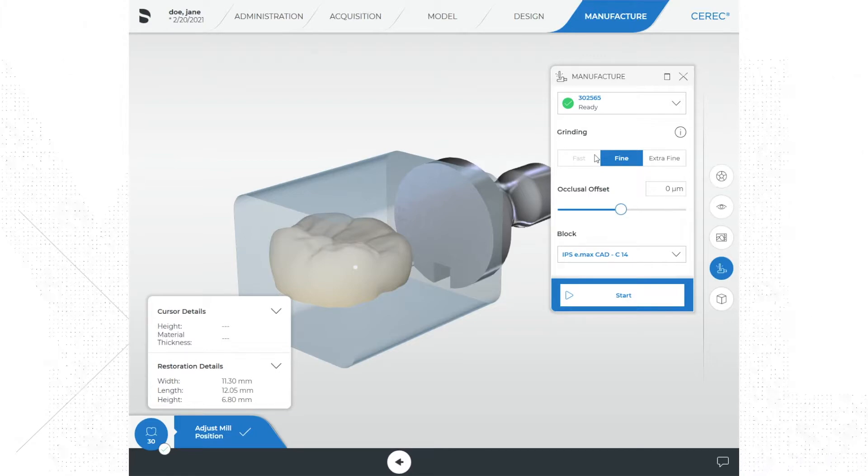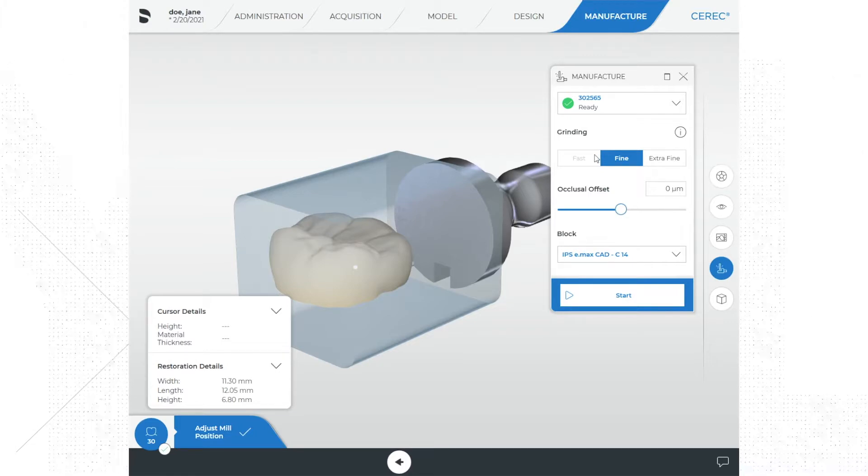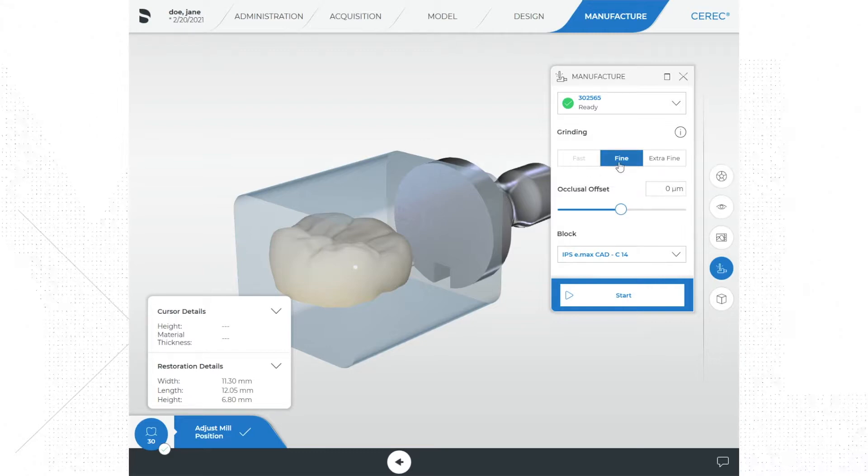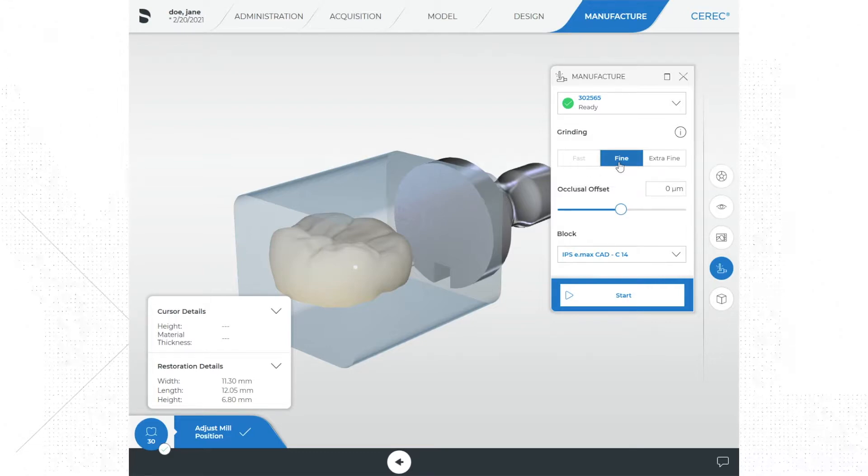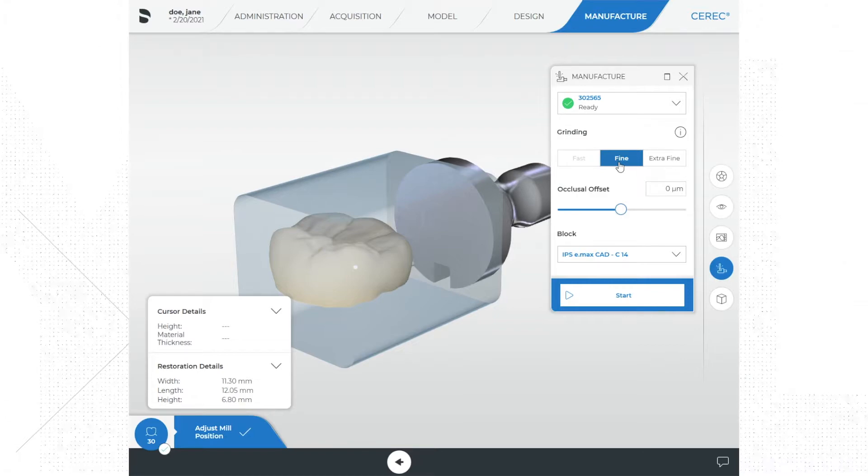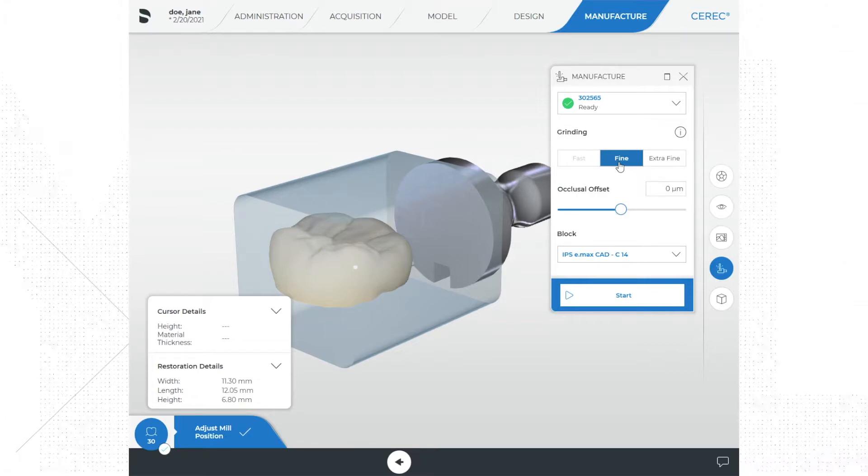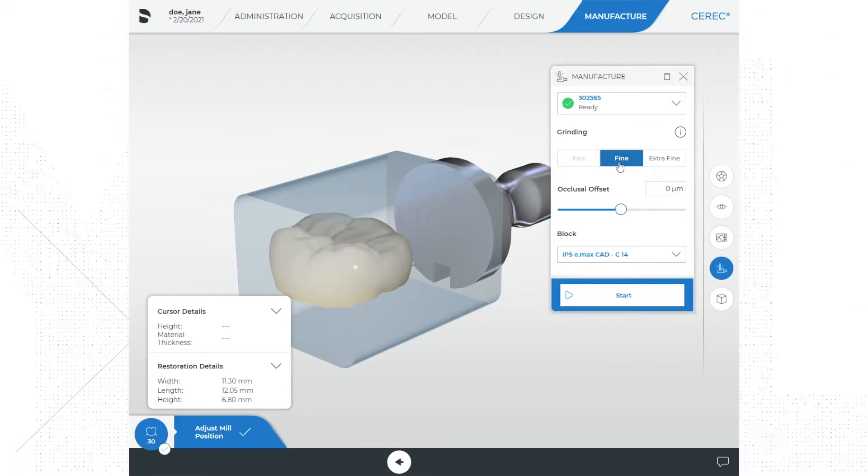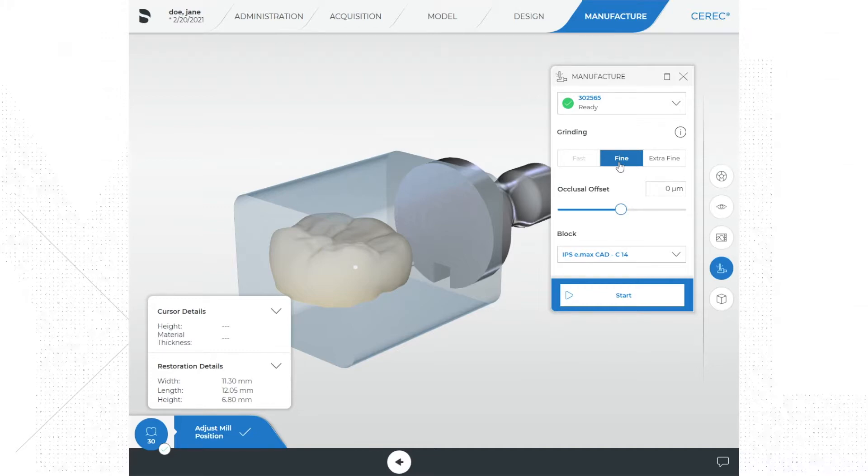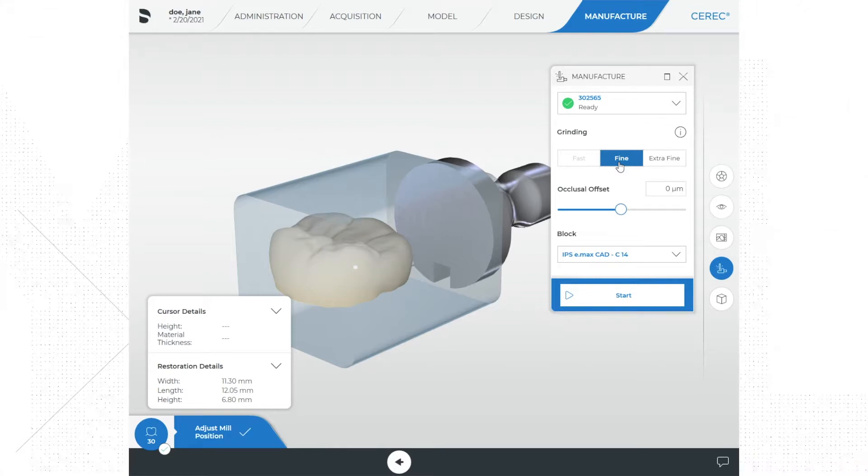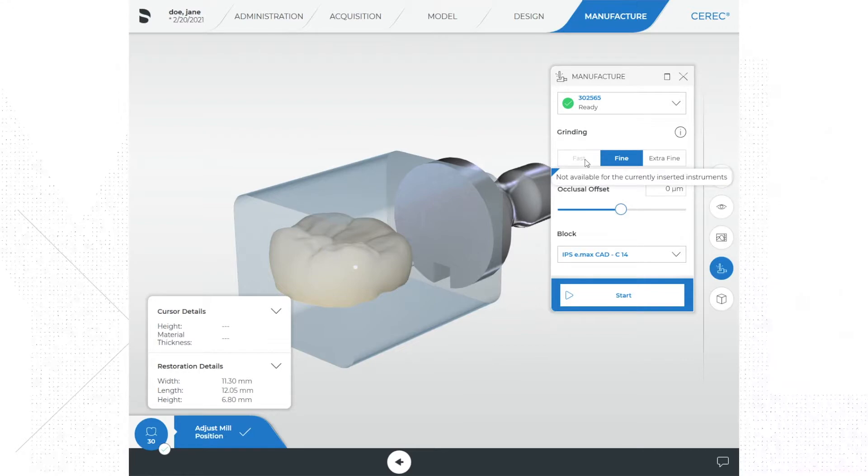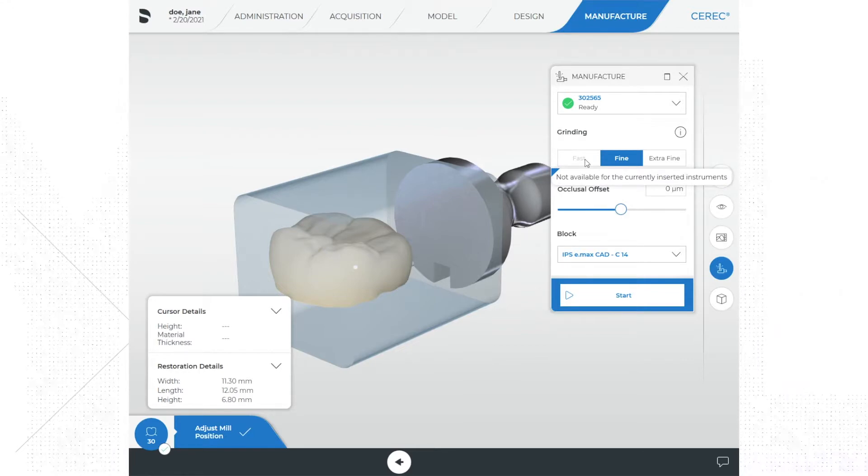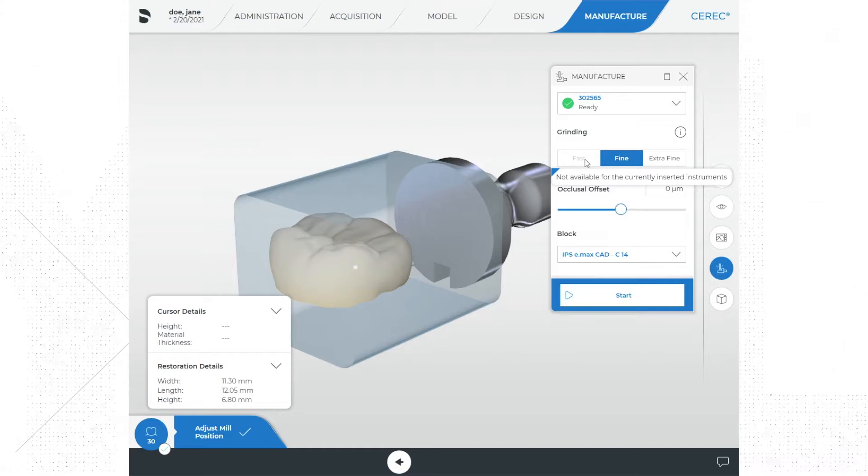Fine milling, which is the normal default option, is used for most restorations. This mode focuses on the surface quality of the restoration while reducing stress on the material itself. This is an option for when the restoration quality has priority over the milling time. Fast mill will reduce the mill time by up to 40% but will leave the surface slightly rougher. Use this mode if production time is the highest priority, for example you could use this for temporary restorations or for composite-based restorations.